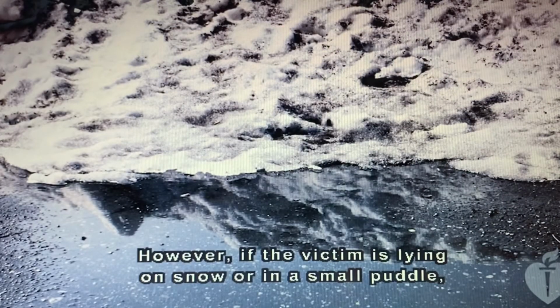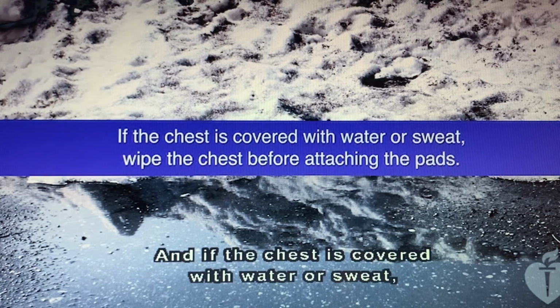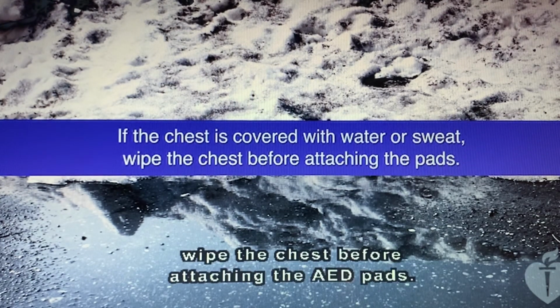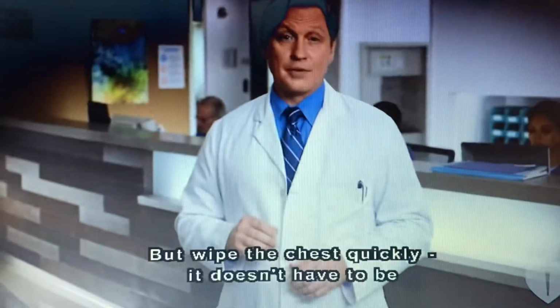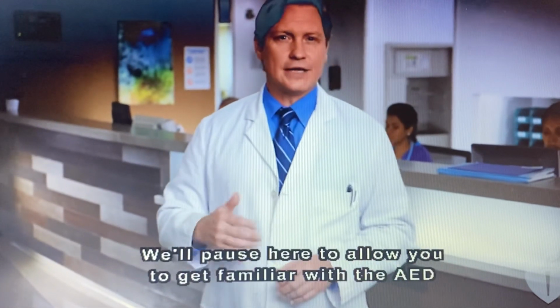However, if the victim is lying on snow or in a small puddle, you may use the AED. And if the chest is covered with water or sweat, wipe the chest before attaching the AED pads. But wipe the chest quickly. It doesn't have to be completely dry. We'll pause here to allow you to get familiar with the AED.